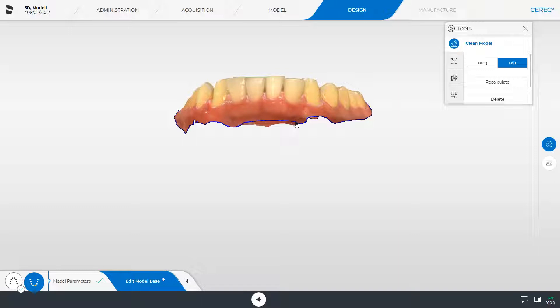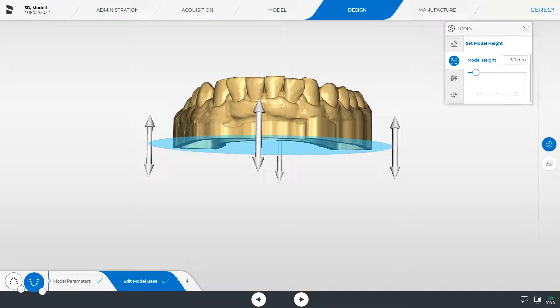To make adjustments for the opposing jaw as well, click the corresponding icon to the left of the step menu. Next, we switch to the set model height tool. This tool lets you define the base height of the model. The height can be adjusted with the slider or changed by using the arrows.